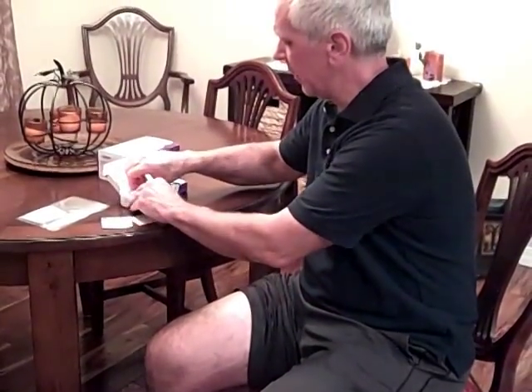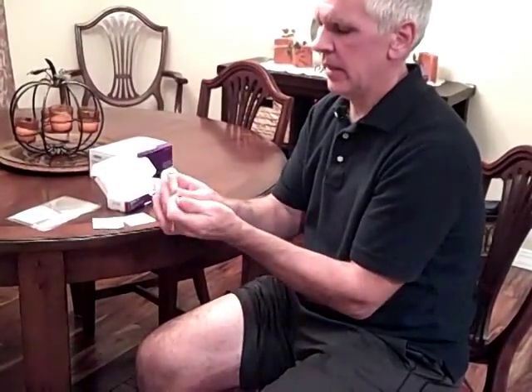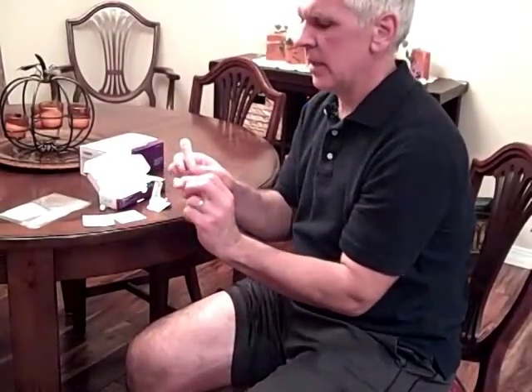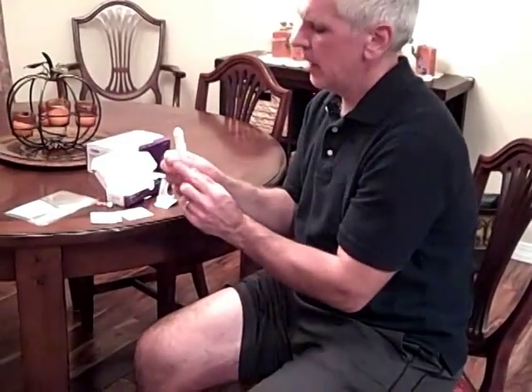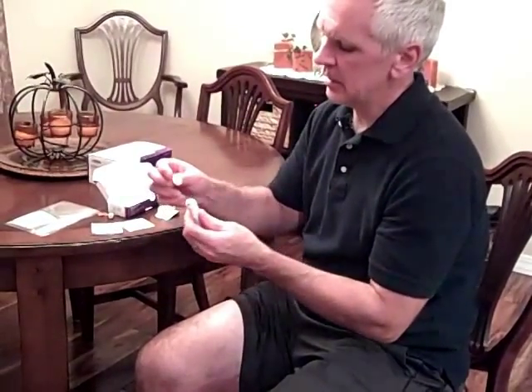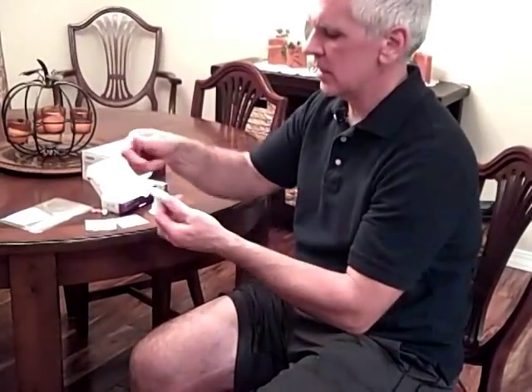Then I'll take the pen out of the container — you just break the top off of this and that exposes the tip of it. Then you take the needle; you have to take this off the top of the container and peel it off. The needle is actually connected to that orange plastic piece, and this just screws right on the end there so it's nice and snug.